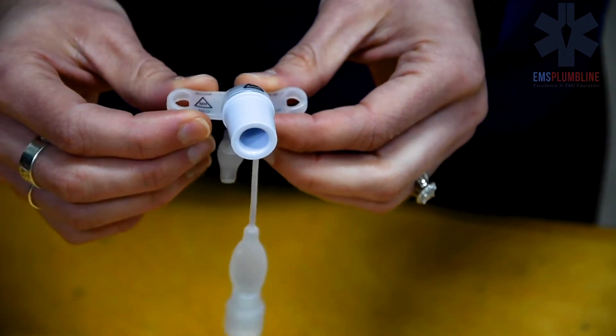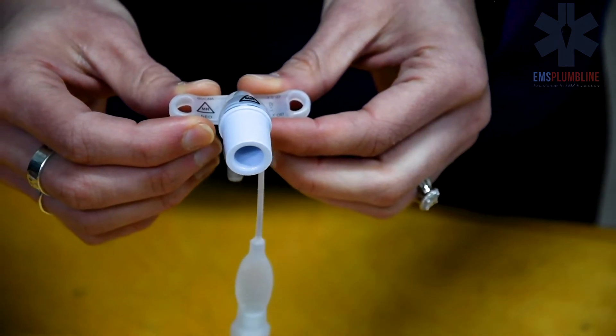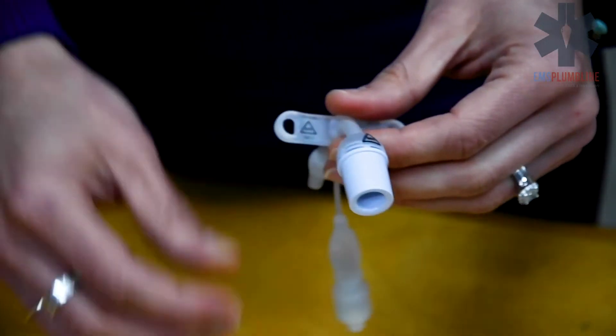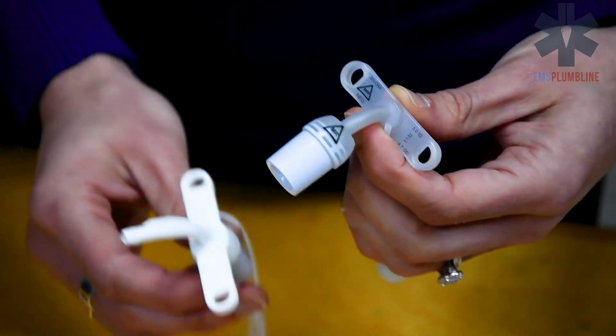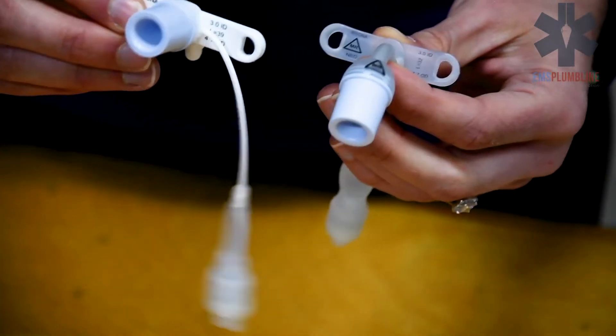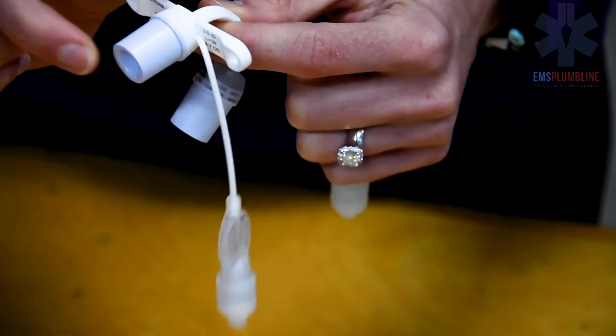A standard tracheostomy tube does not have the proximal extension. Oftentimes, Shiley tracheostomy tubes will not have that extension.